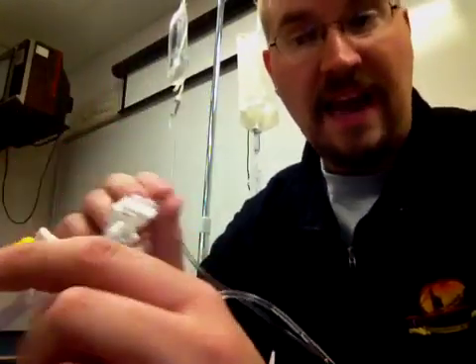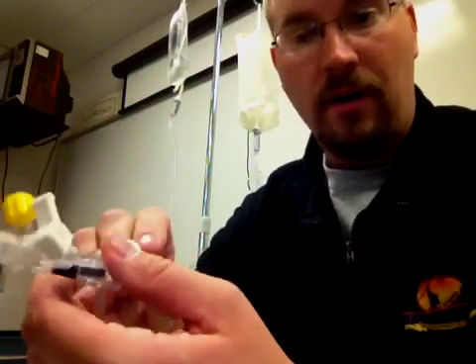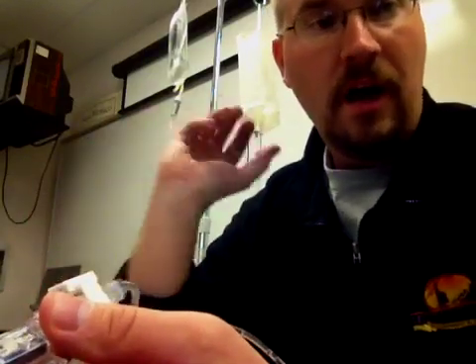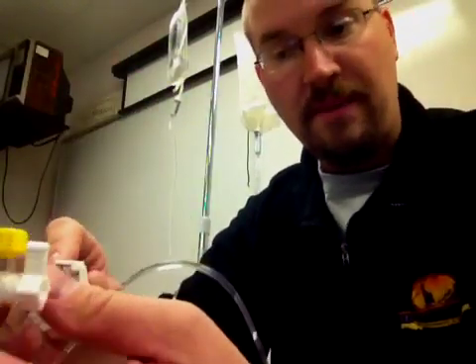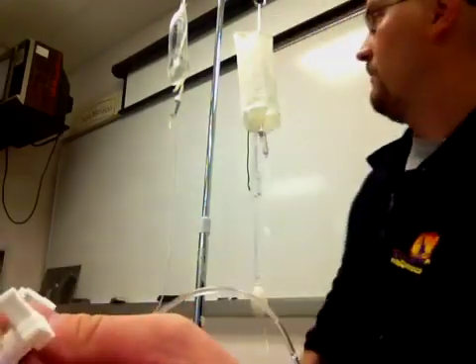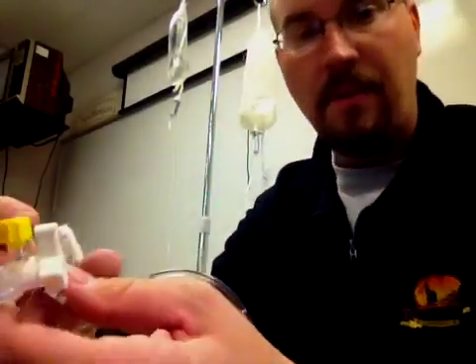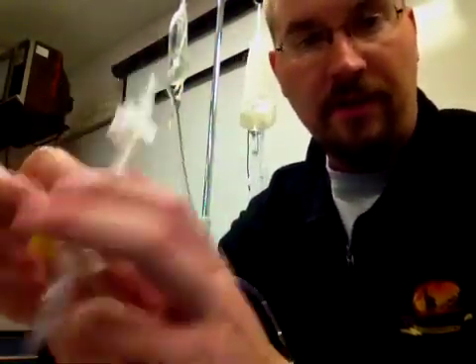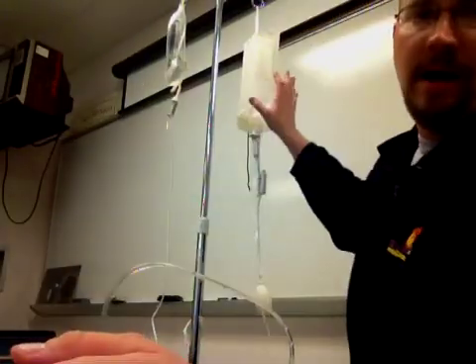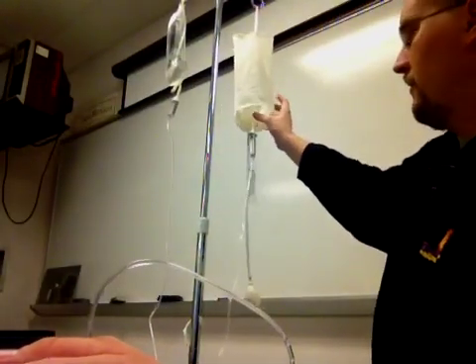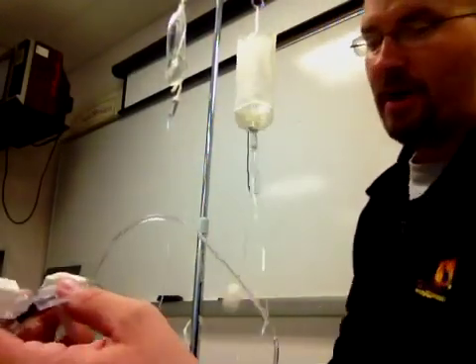We need to have an open conduit. We need to have fluid all the way through this line. Otherwise those waves of pressure can't be transduced. So if my pressure becomes real low on the bag and the little valve in there closes, obviously I'm not going to be able to transduce any pressure from the patient. So I inflate this to 300 millimeters of mercury. I need to get all the air out of the line. It's very important. We'll talk about something called damping, underdamping and overdamping probably in other videos.